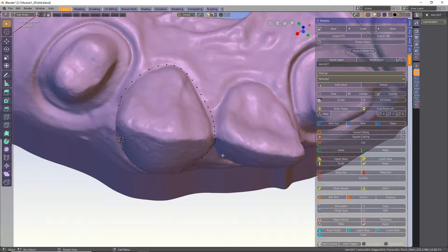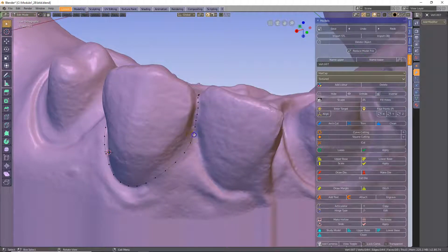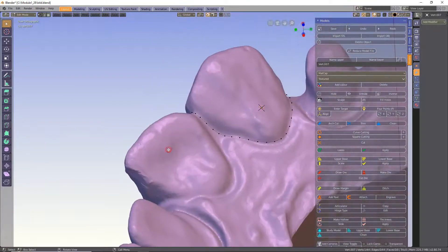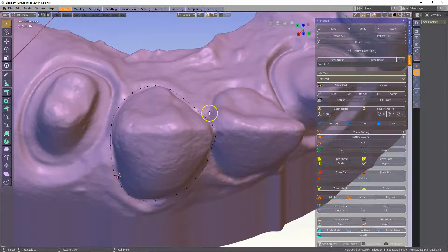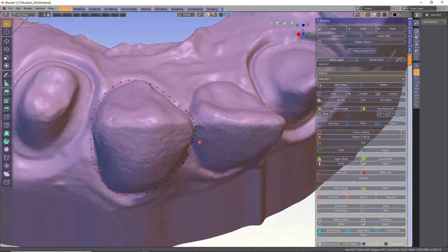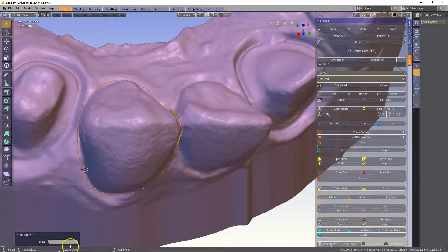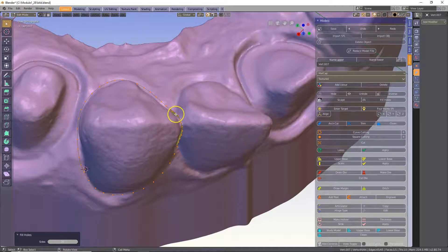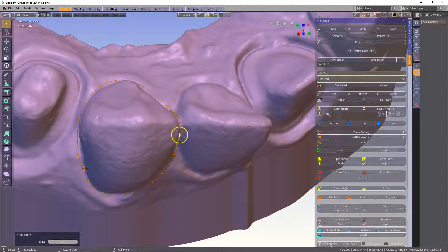The next step: tab into edit mode to highlight the vertices, then click on one of the vertices on one side and one on the other side and press F. We are basically recreating the contact. Now press A to select all of them and click on fill holes. I have set it to 20. If it's set to less it may not fill, so this is a trial and error thing. Once you've got a face there, you've recreated the contact area.